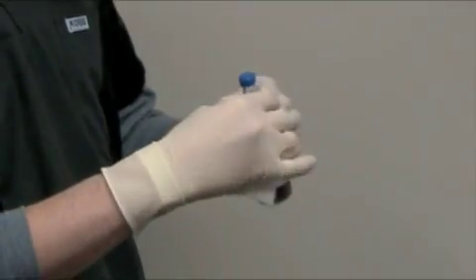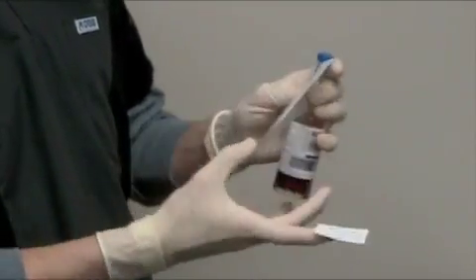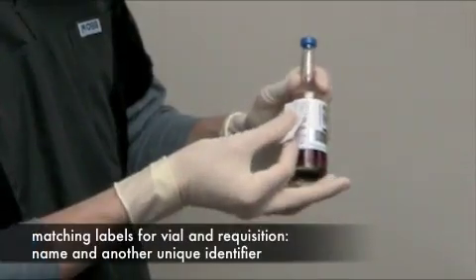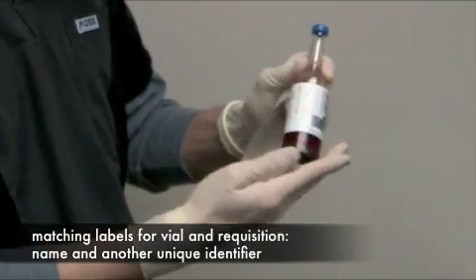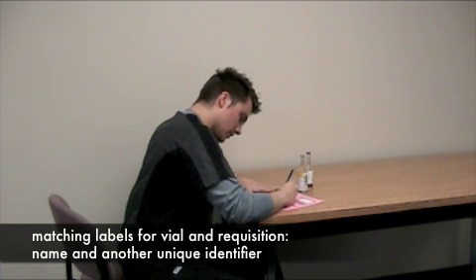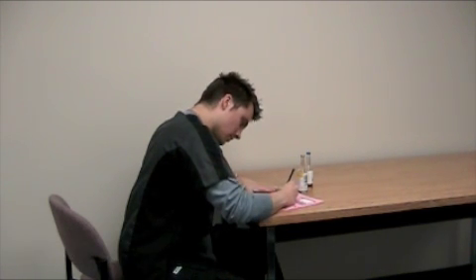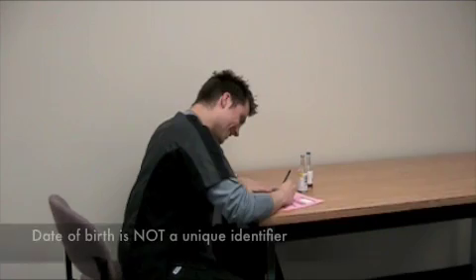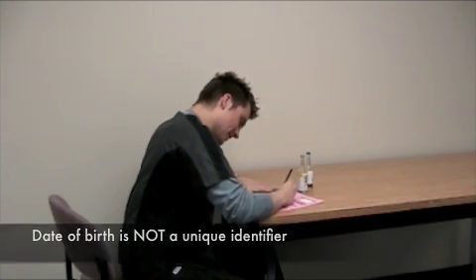Do not cover the vial barcode or bottom while labelling. Specimen and requisition require matching labelling that includes the patient's name and another unique identifier, such as health card number or hospital unit number. Note that date of birth is not a unique identifier.